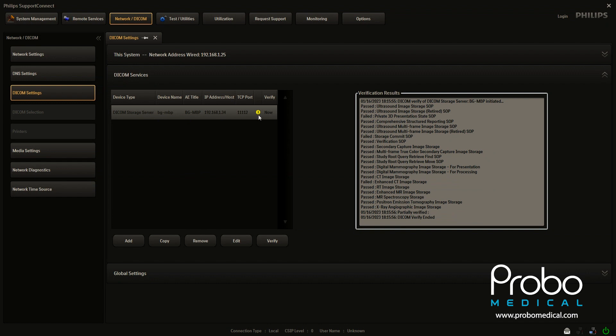That's not bad. It just means that some things passed and some things failed. And on the Epic, it tests a great many different DICOM protocols, and no one server uses them all. So that's why you tend to get a lot of exclamation points.